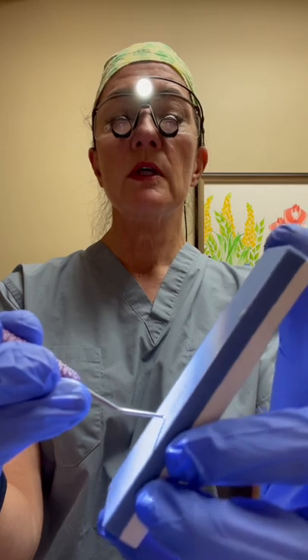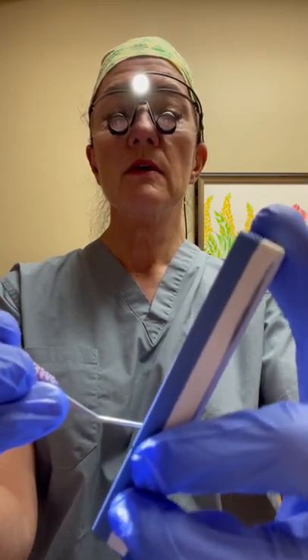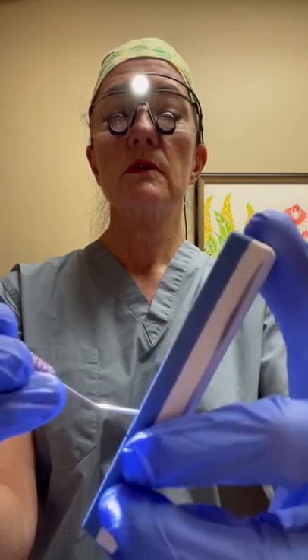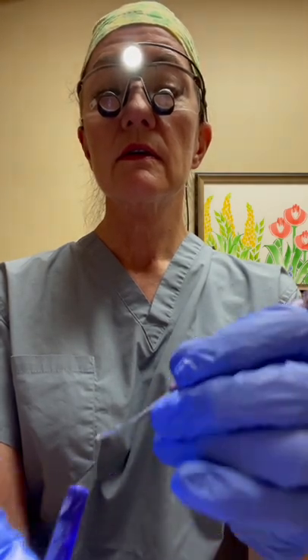Now I'm going to come around to the cutting edge that's kind of facing you right now at the camera. Sharpen that until dust appears. Now I want to check it — yes, it's shaving the test stick. That's good, it's shaving it really well.